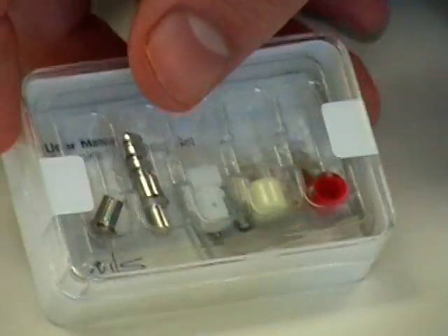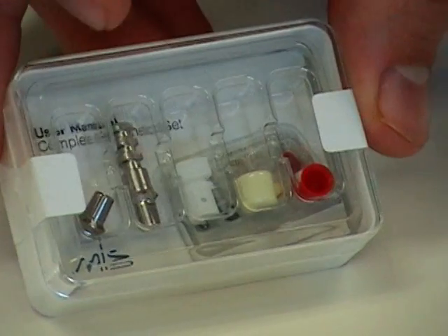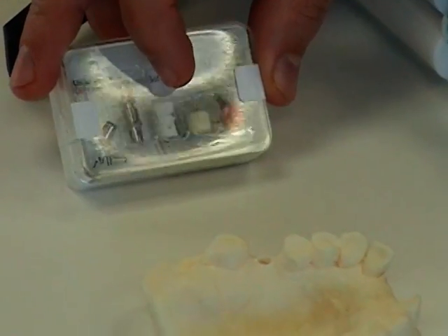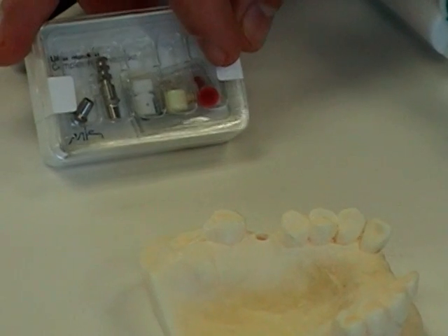What that means is that the included abutment has a one millimeter collar. Each Complete Prosthetic Set also includes the abutment level analog, a snap-on plastic impression coping, a comfort cap, and a burnout plastic for the lab to use.